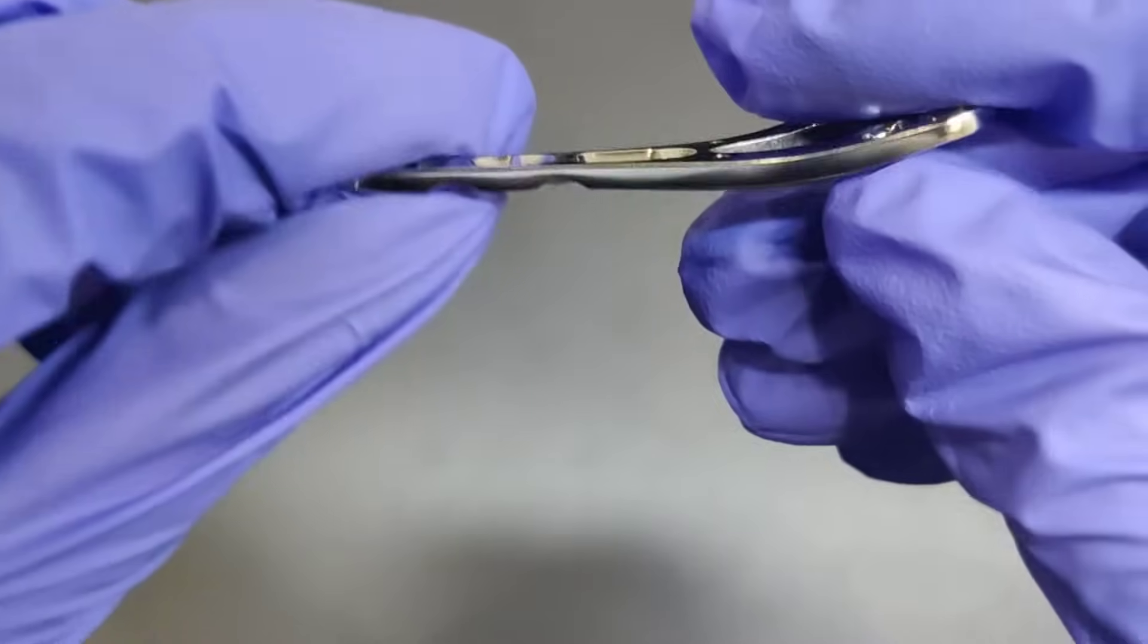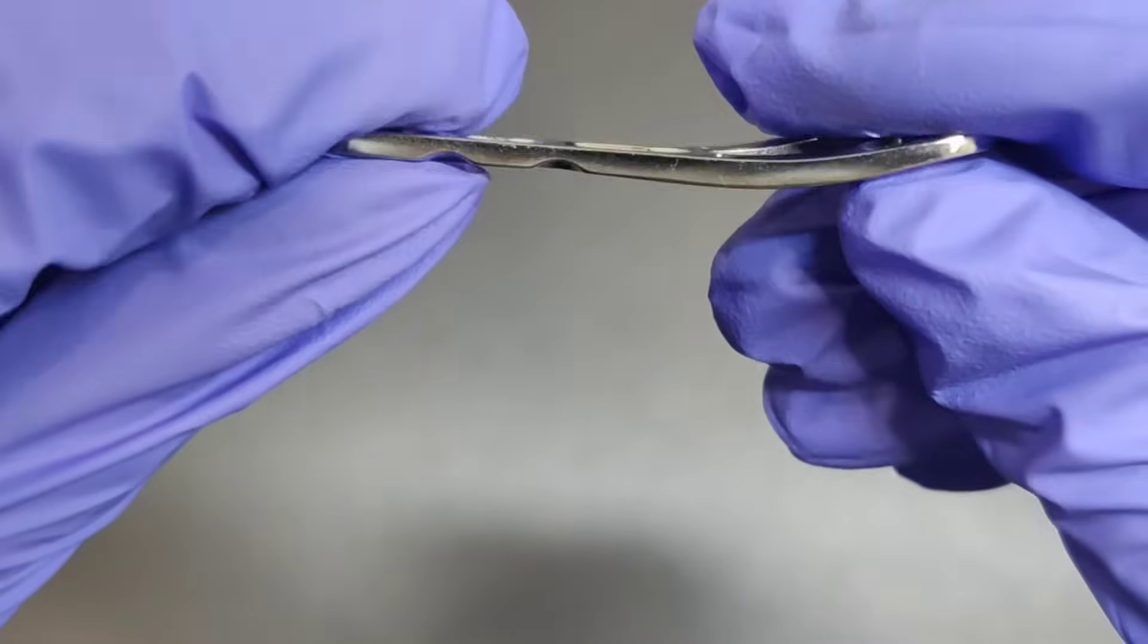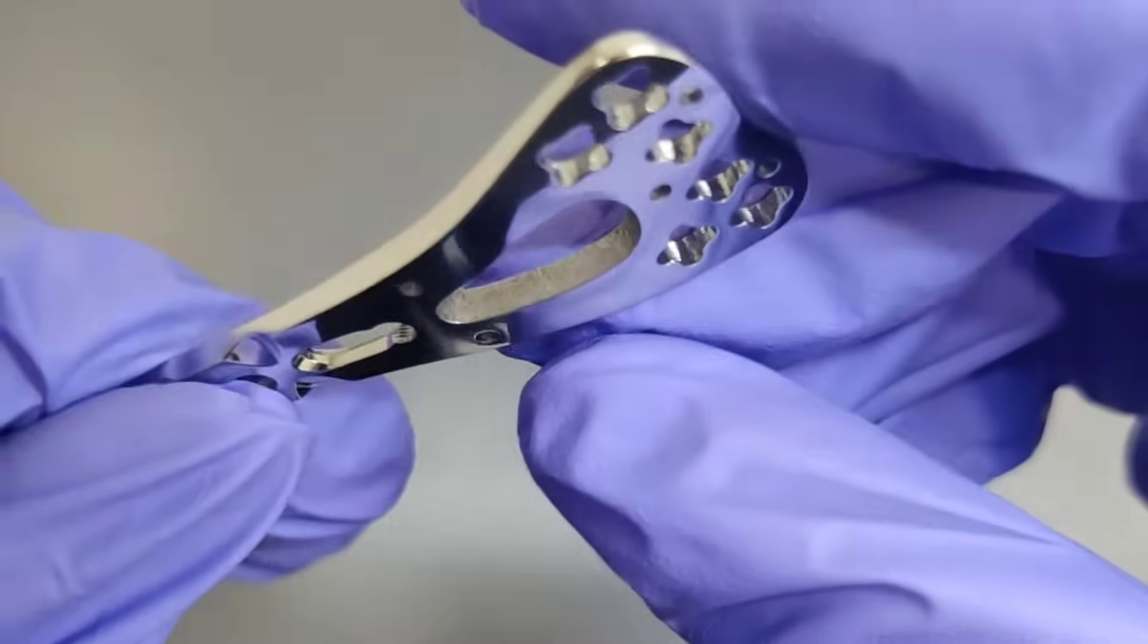This feature provides added reinforcement to the distal radius, fostering quicker and more reliable healing.